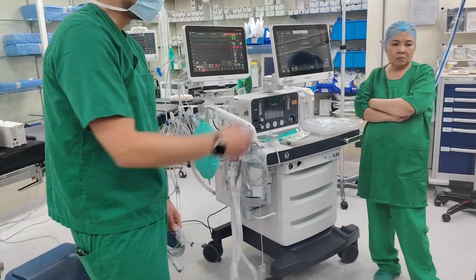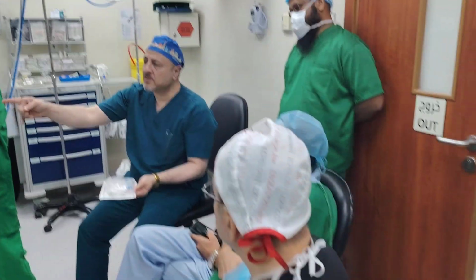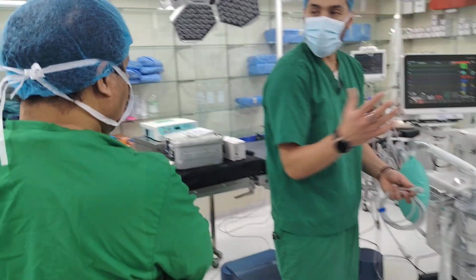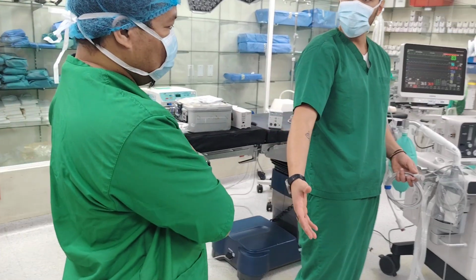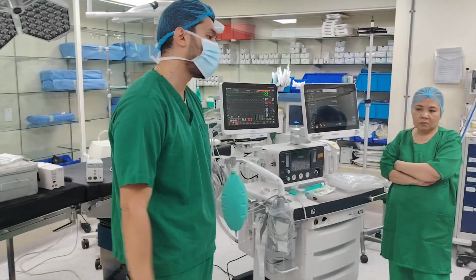For CVP, you need to check the consumable, meaning what it will be matched with our transducer. Well, we can change the transducer. To be honest with the engineer, as you see, we have different types of transducer. Once you decide on the consumable you want, the brand you want, okay, then you can contact us, and then we will tell you which cable. Maybe this cable can work. Maybe another cable. You need to maybe give another cable.